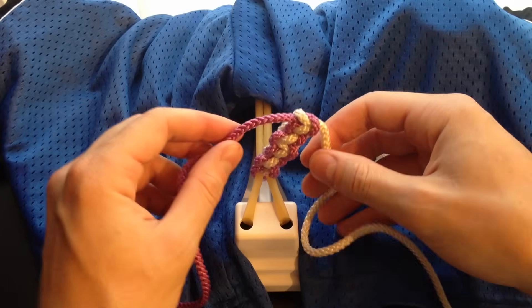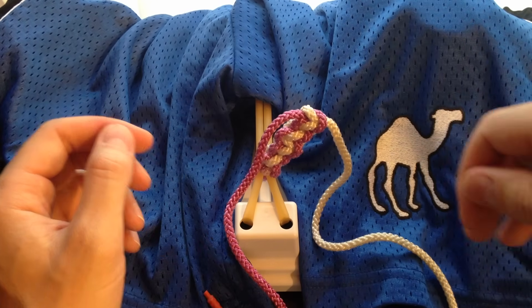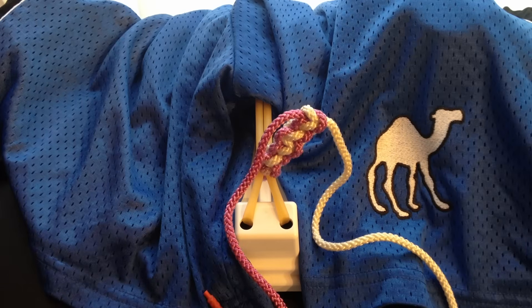So there you go — that is the one-handed tie with your right hand. Again, repetition is key, so feel free to watch this video as many times as you'd like and keep practicing; eventually you're going to get it. A cool thing with the one-handed technique is that it allows for an easy way to tie a sliding knot, which I think is one of the more useful knots you can use in the OR. Check out my other videos for the sliding knot technique.